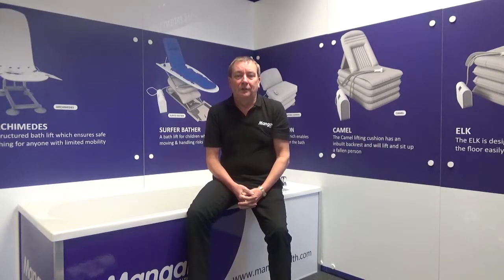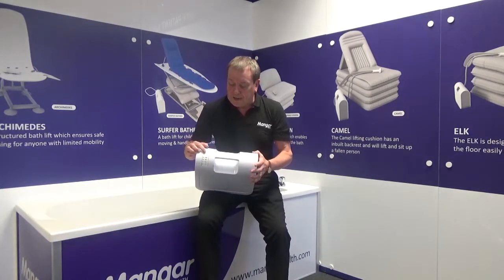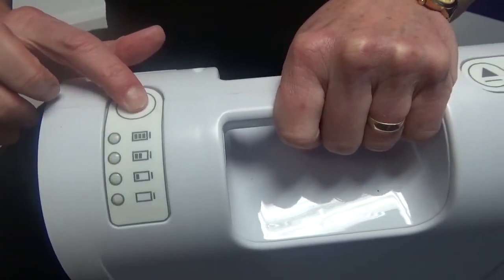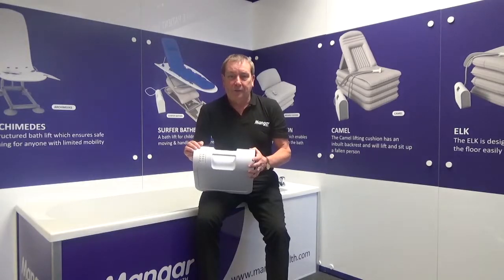In this session we'd like to look at the Airflow 12 compressor. On the top of the compressor, the first thing we're going to see is a battery indicator light. If I push the light, you'll see at the moment all four lights come on — that tells me that the unit is fully charged.